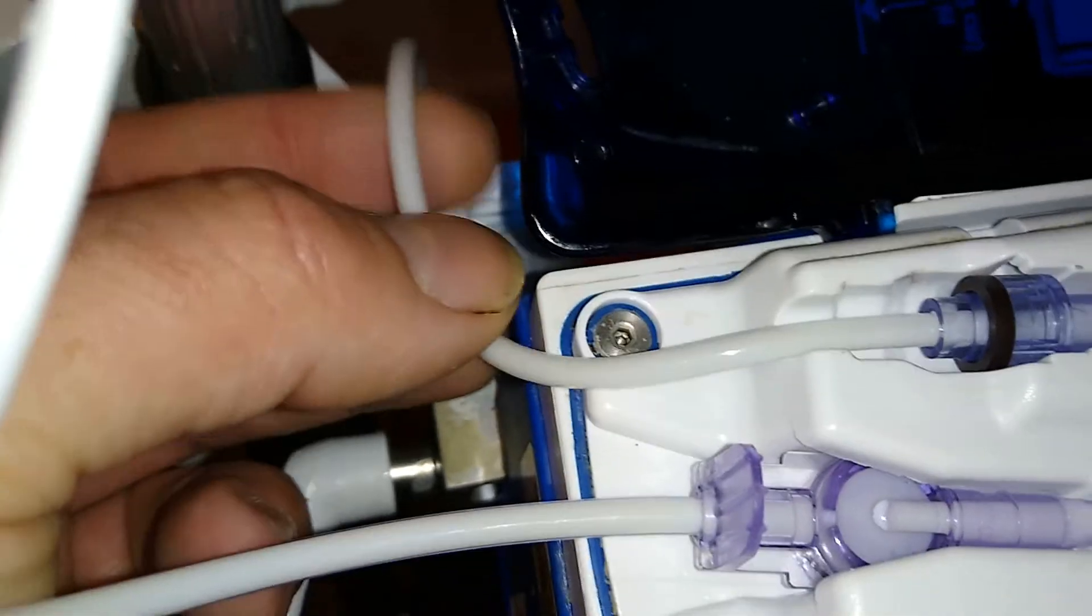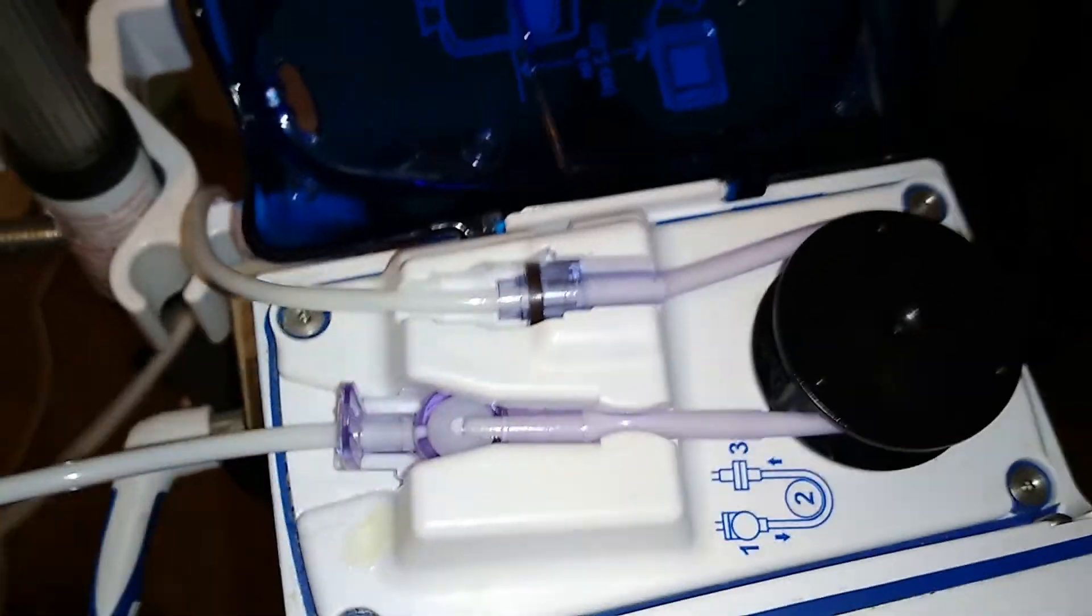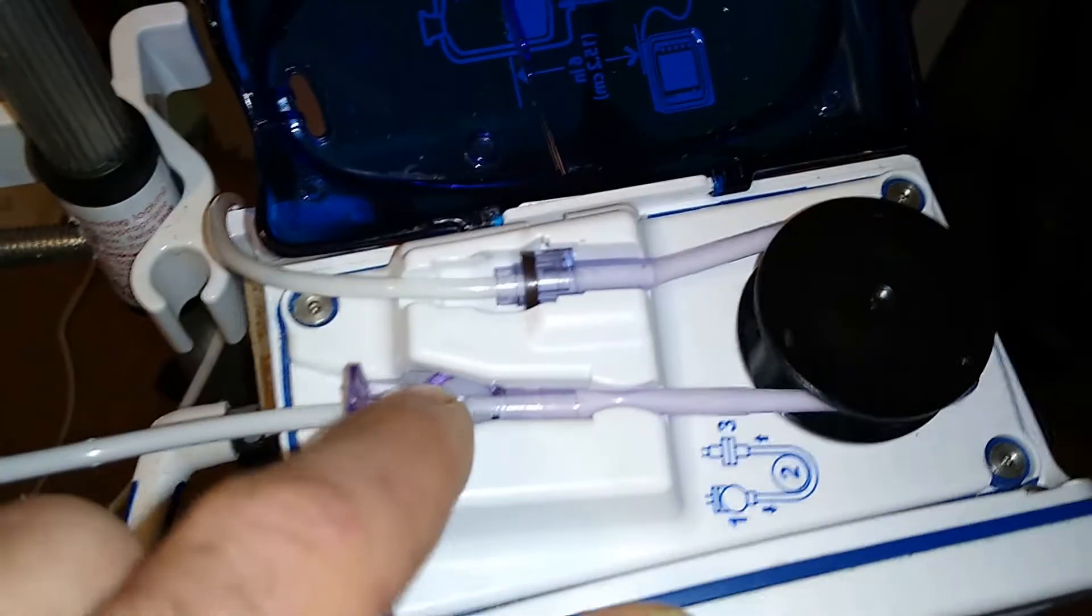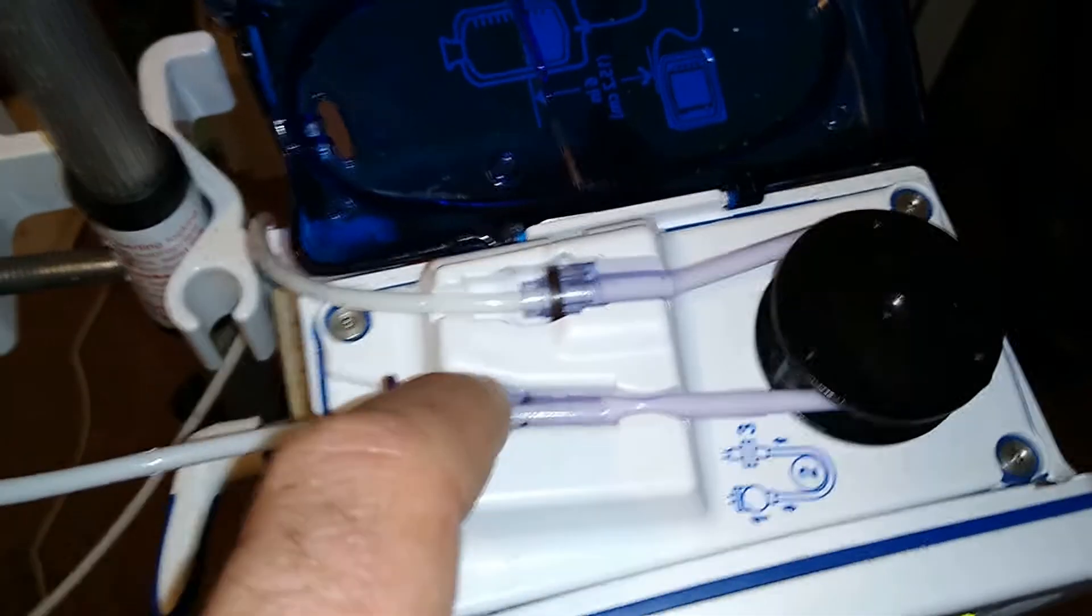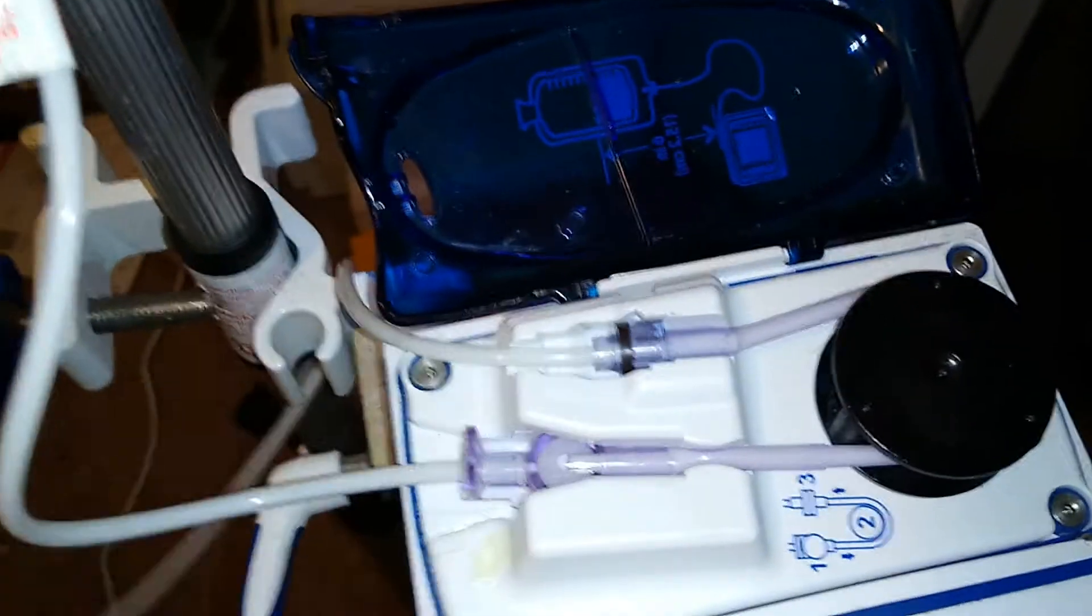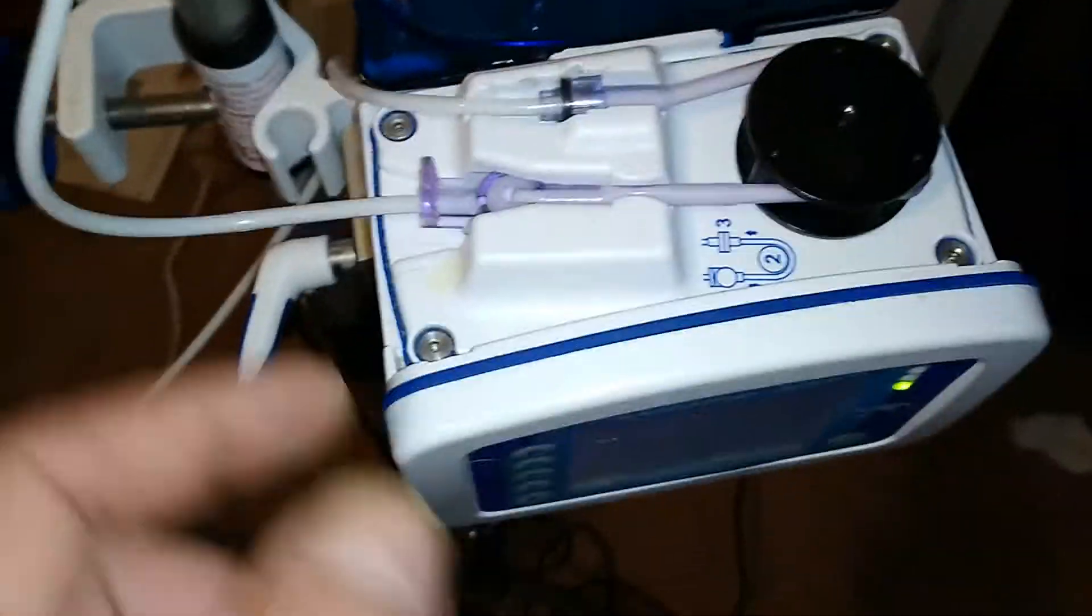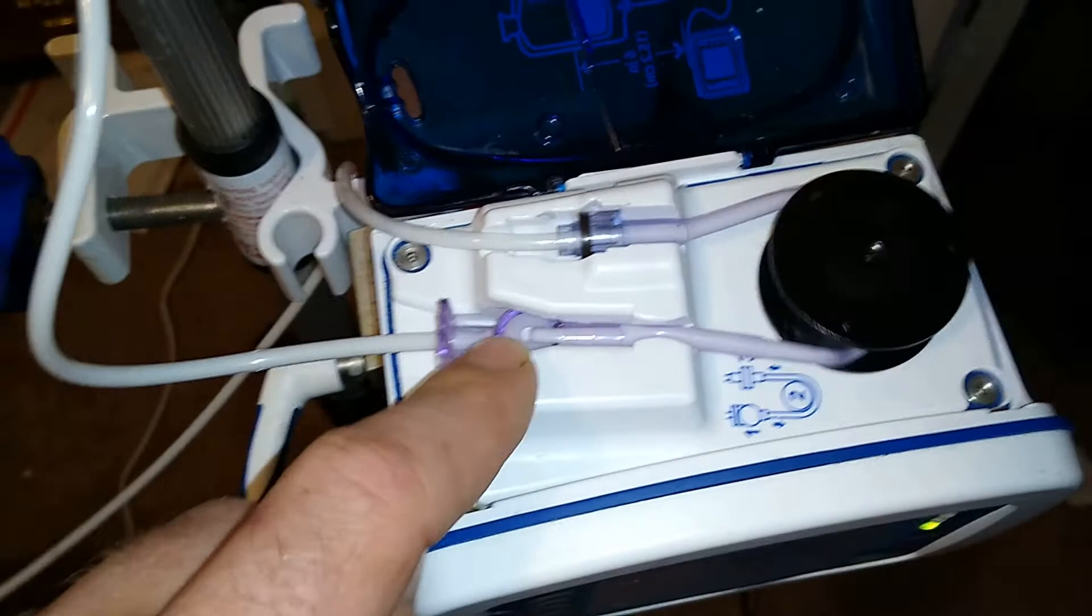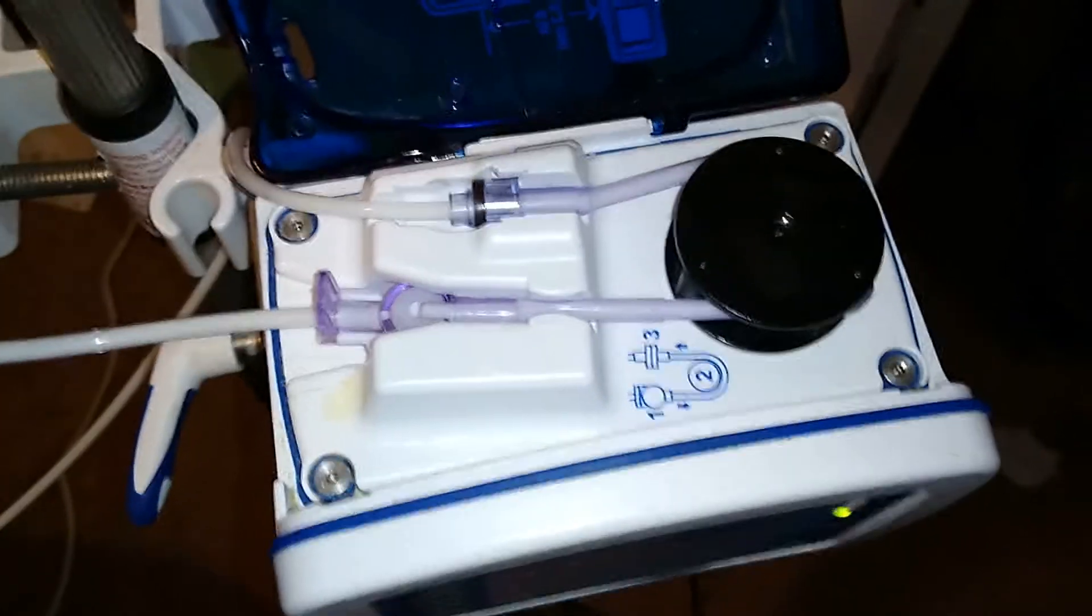Because that bubble just moved down, you see it? So that's pretty much all you have to do. You just wait for the foam and if it does give you the error, just flick this until it pops and it makes like one big bubble that'll go through. And that's it. There's nothing wrong with the machine. You don't need to send it back. It's just you're being impatient with the foam when you shake the bottle.